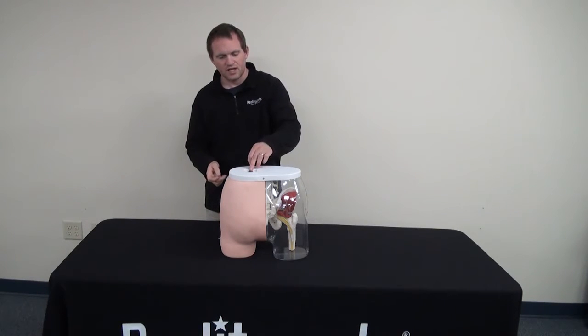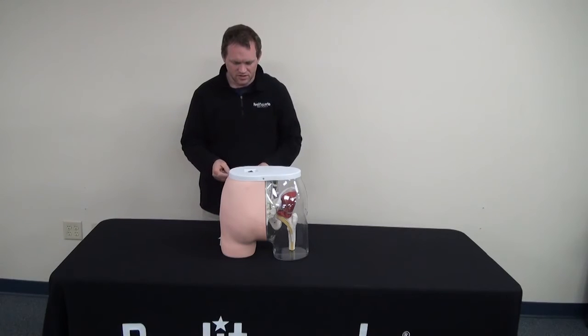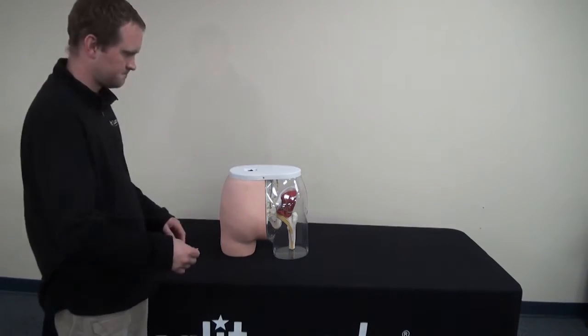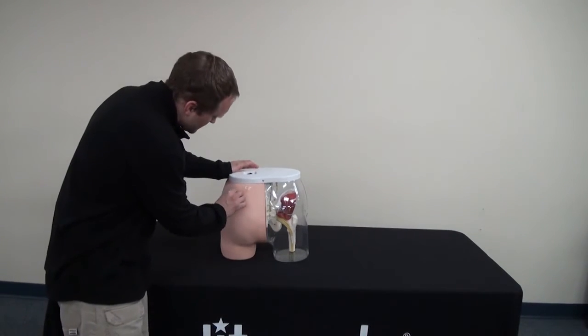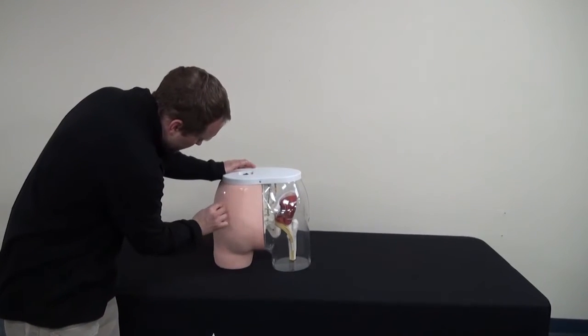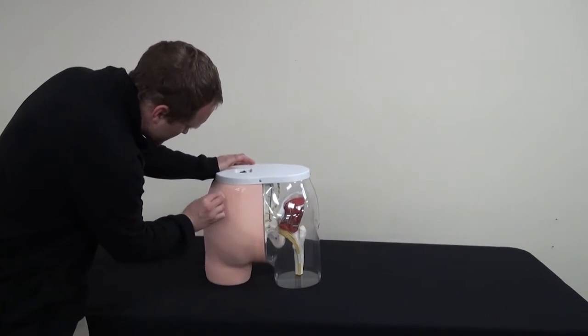Begin by turning on the Buttocks Intramuscular Injection Simulator. Go ahead and clean the area that you are going to inject.